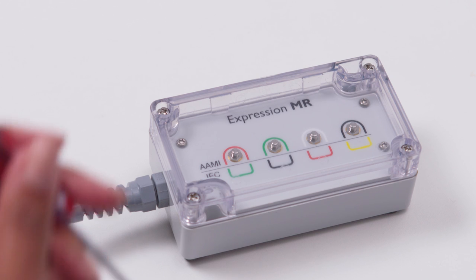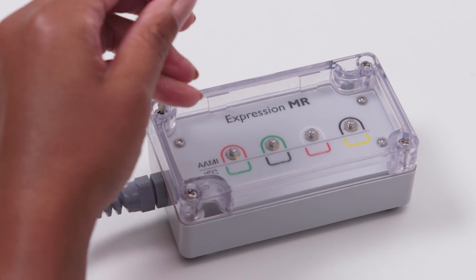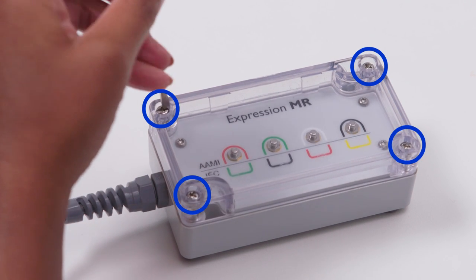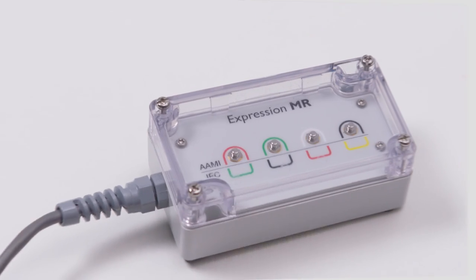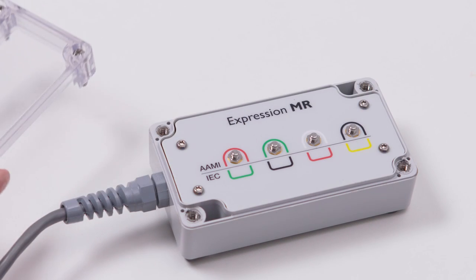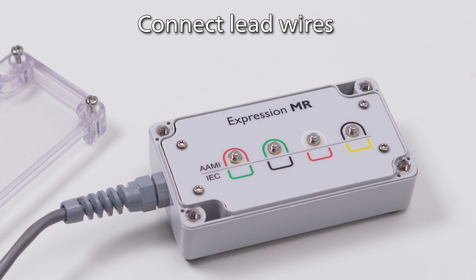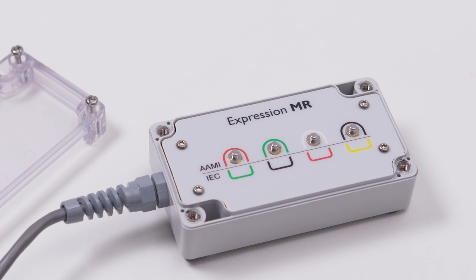Be sure to use MRSAFE tools to remove and replace the protective cover, or remove and replace the cover outside of the MR room. After removing the universal gating cable box's protective cover, connect the MRI system's lead wires to the corresponding connection point on the cable box.